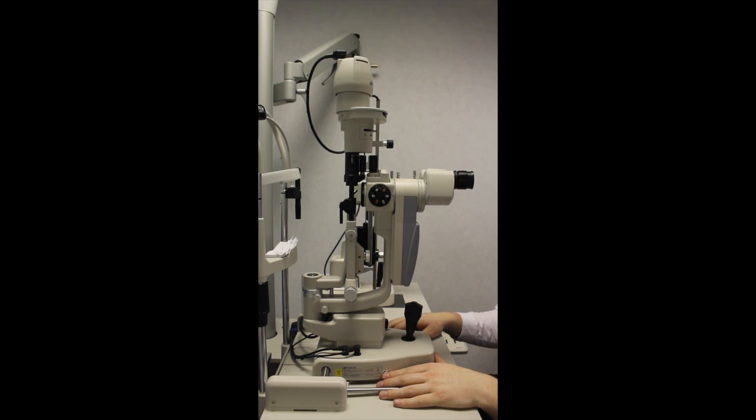Before we begin to use the slit lamp, it is important that it is set up for that particular user. This should be done with the room lights off, but for recording purposes we will demonstrate with the lights on.